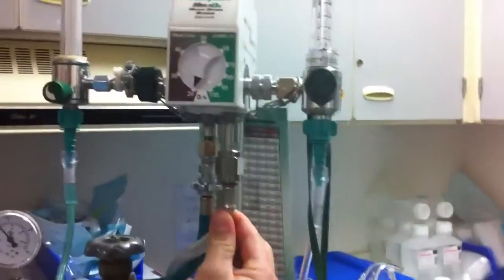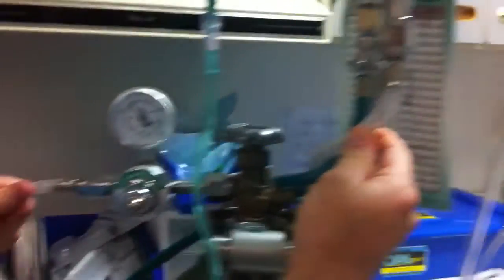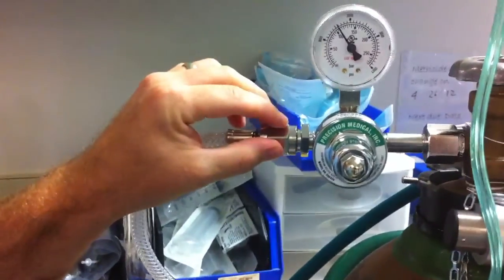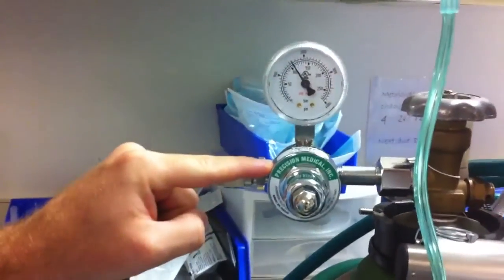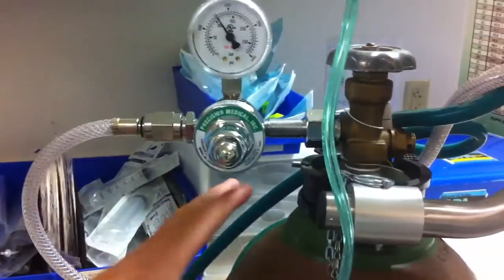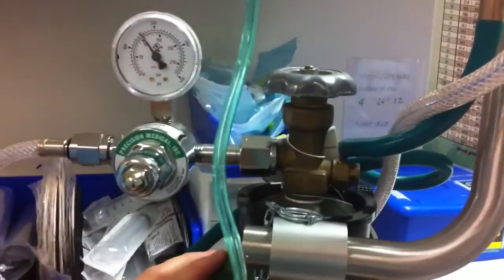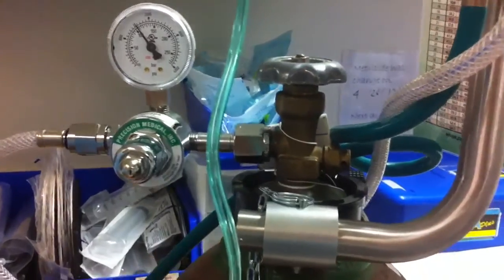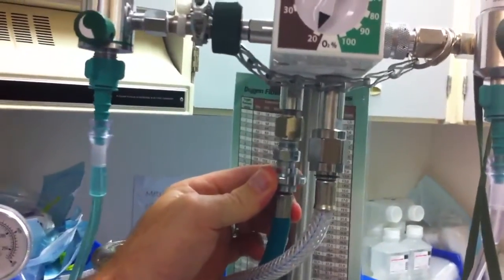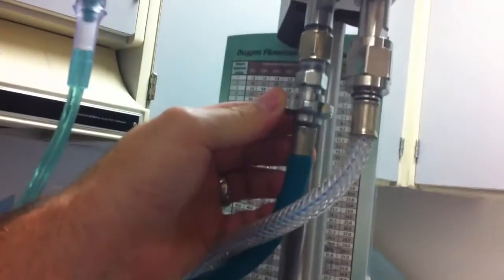You have your compressed gas hose right here, which comes down and attaches to your Heliox regulator. And the Heliox regulator attaches straight to your Heliox tank. You also have your compressed oxygen hose right here, which is attaching to a 50 psi oxygen source.